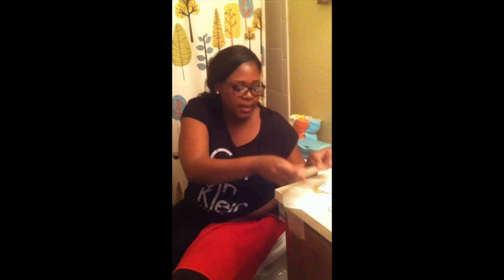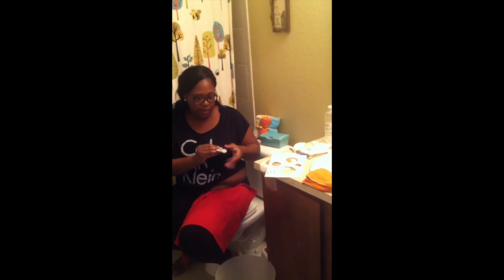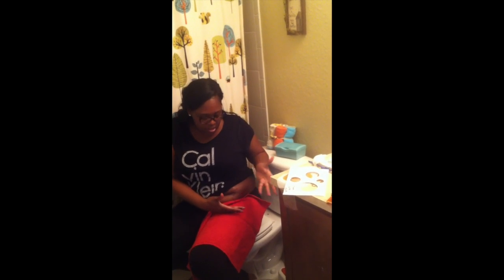This is my actual size that I cut out using the stoma sizing guide. Before I actually put my stoma on — oh sorry, I have some goo coming out. That is why I created my volcano. I just wrap this around my stoma and what it does is when it leaks, it just catches some of the leakage so it doesn't spill over and get onto my skin. You have to be patient because you're going to have to keep cleaning the skin — you can't control the leakage of the stoma.